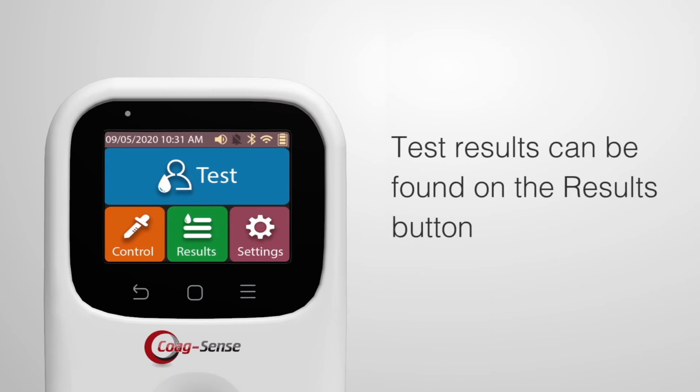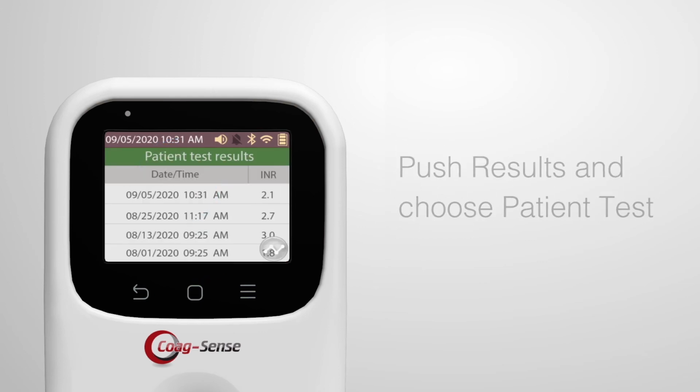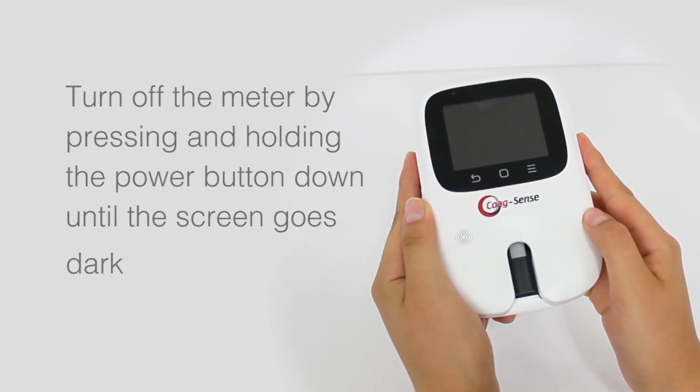The test result is recorded in memory and it can be found on the main menu using the Results button. Push Results and choose Patient Test. Turn off the meter by pressing and holding the power button down until the screen goes dark.